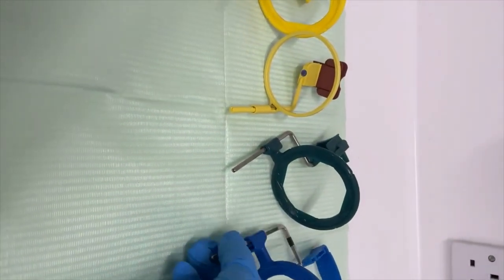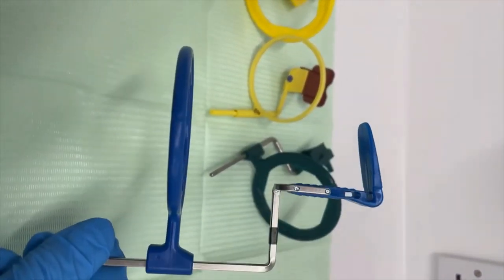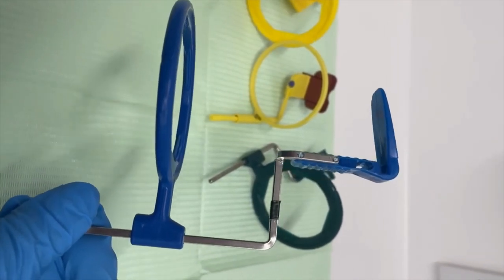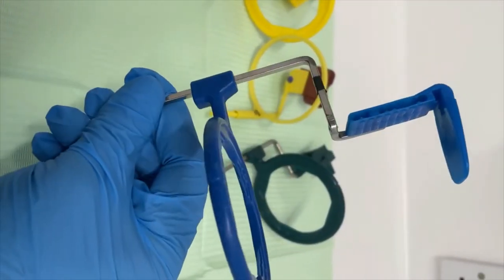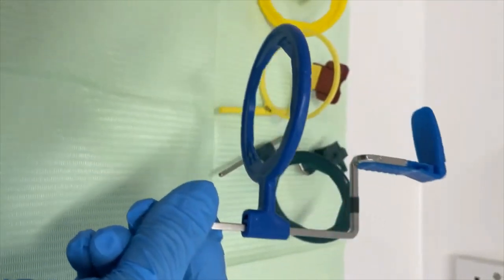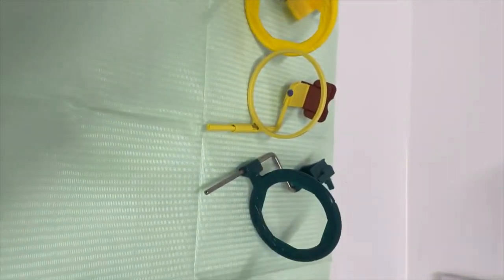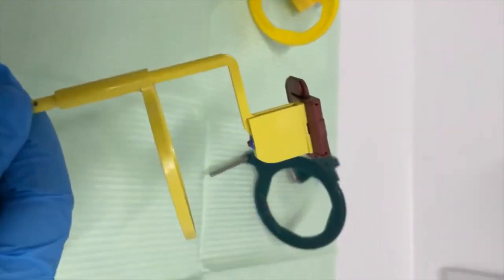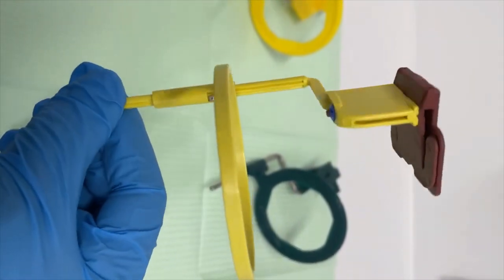And we also have a periapical x-ray holder, and this is for anterior teeth. And then we have a periapical holder for posterior teeth.